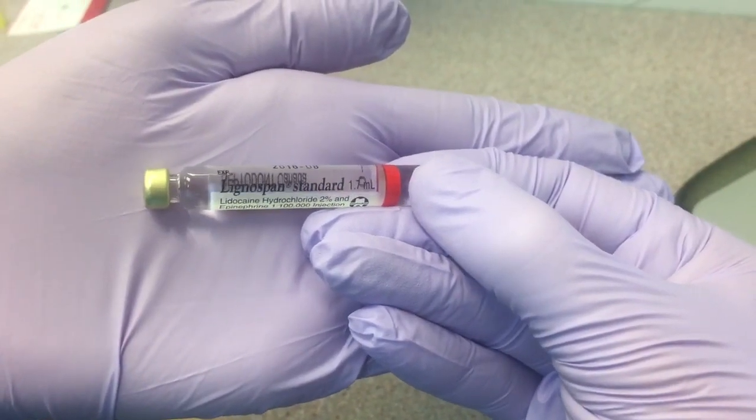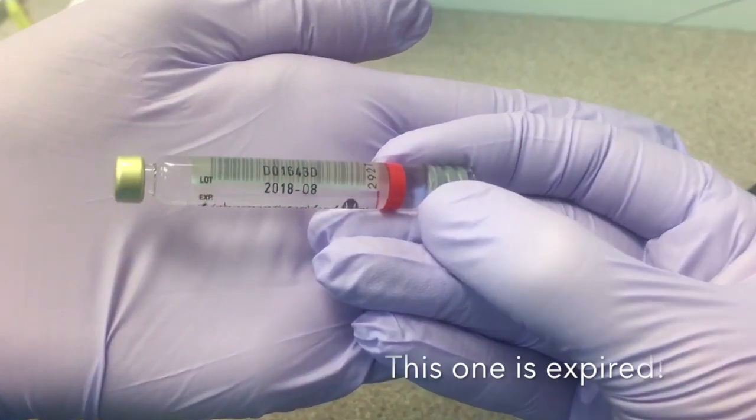Check the anesthetic cartridge for the correct name and dosage and double check the expiration date.